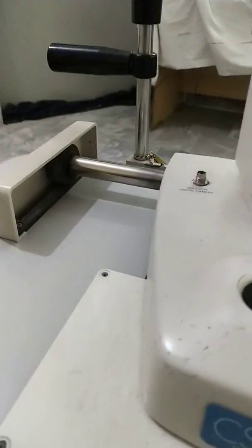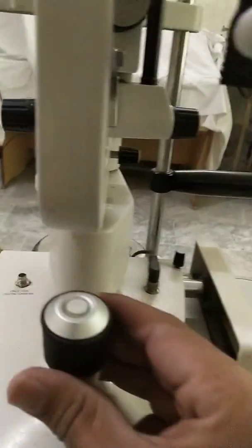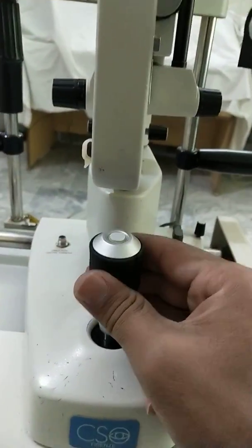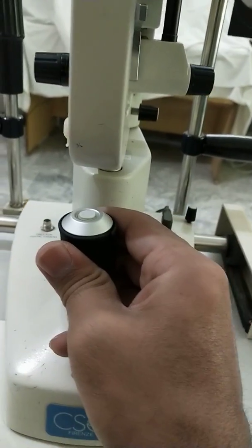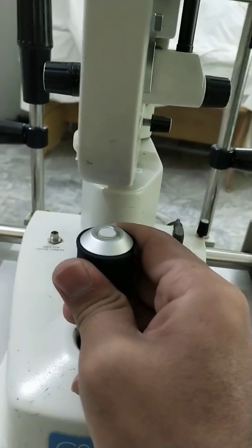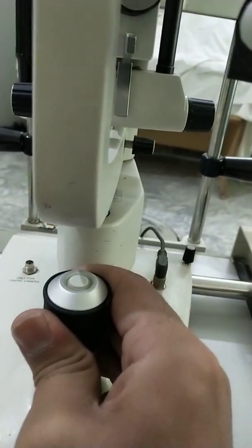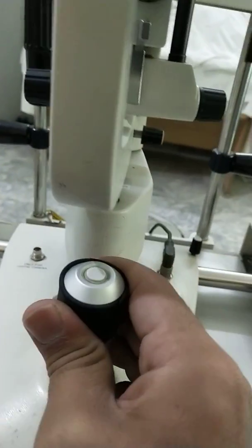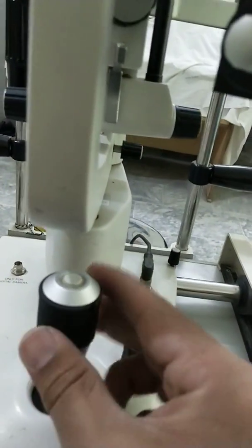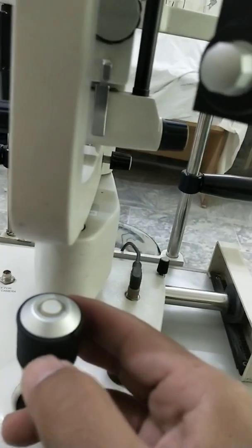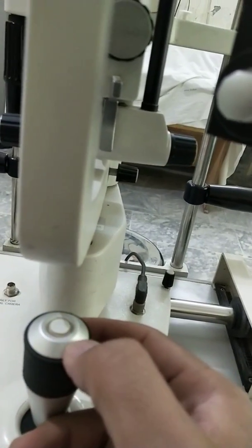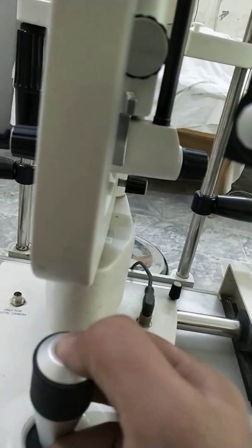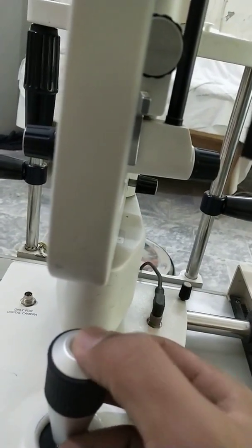Now we come to the table and here you can see the joystick. With the joystick the machine can be moved sideways and forward and backward. And if there is a laser system installed then you can fire it with this button.